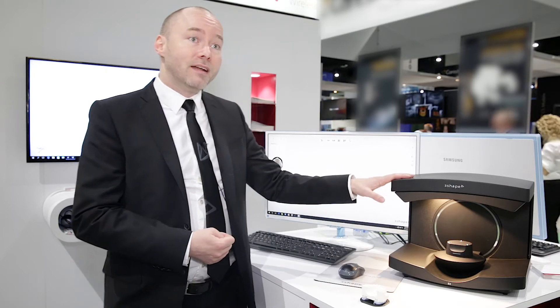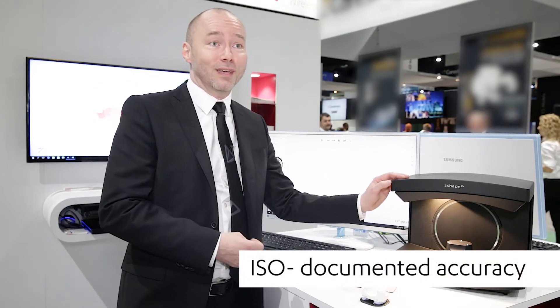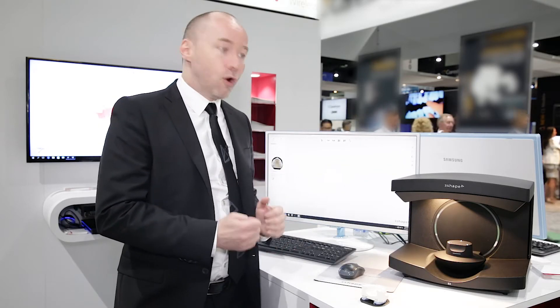The technology you'll find in this scanner portfolio is the same scanner quality you're used to from the big high-end scanners, but we added some new features that we really hope you'll like.